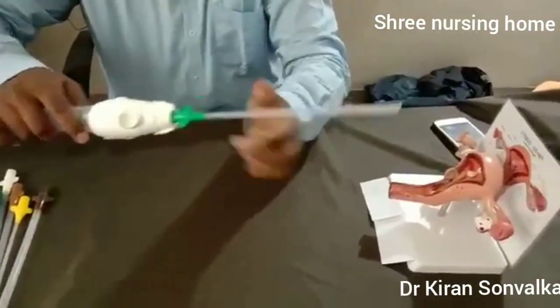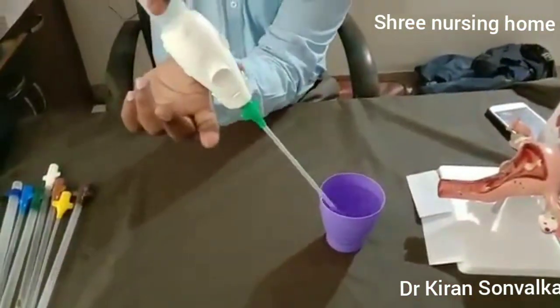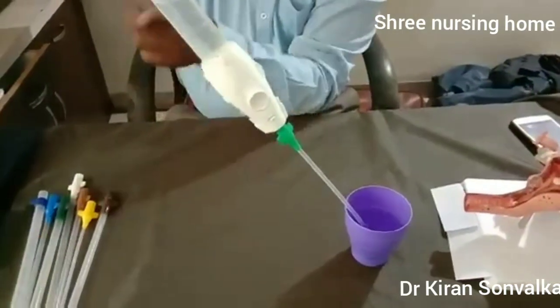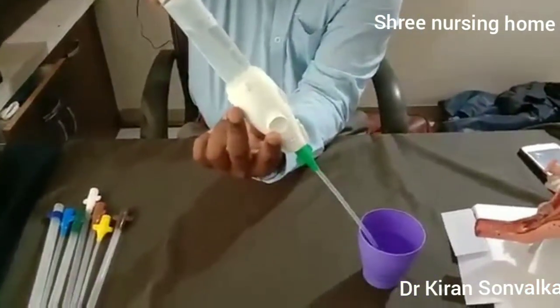Put the cannula back in. Now I'm going to show how it actually works — I'm going to release the vacuum and you will see water inside the syringe. Thank you.